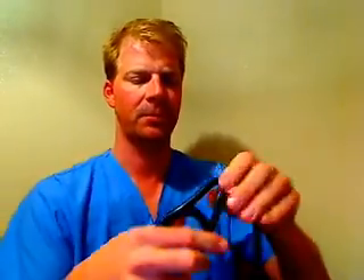The other thing you can check is the joints — like right here — you can bend the tubing and see if you see any cracks. Bend the joints back like that, and if you see a little crack in there, you know you're losing sound, so you'd want to replace the tubing. The tubing can be kind of expensive depending on the stethoscope, but why use a stethoscope if it's not working properly? There's just no point.